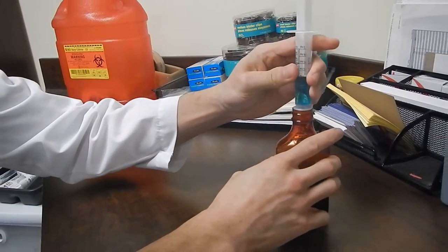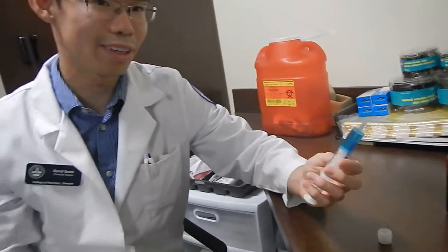So once it's at five, draw it out, pull it out, and voila, that's how you do it.